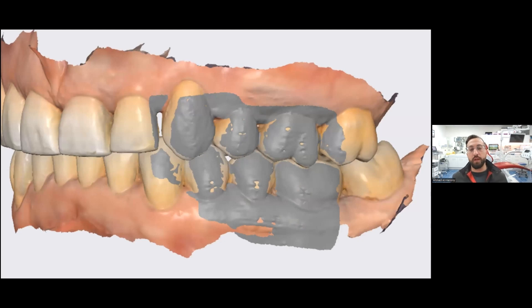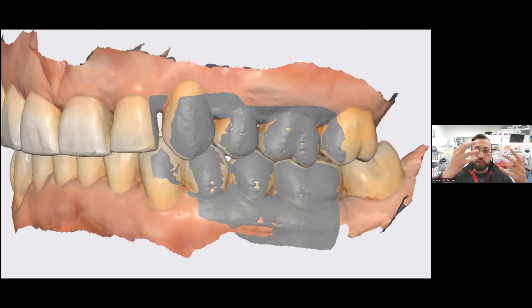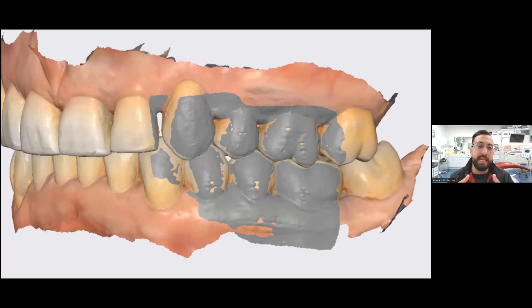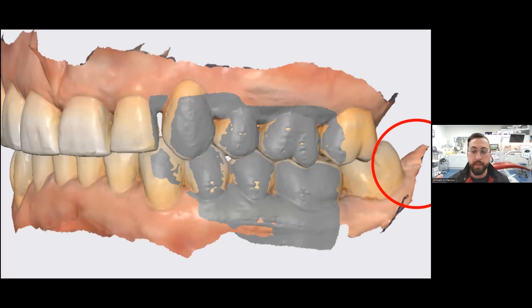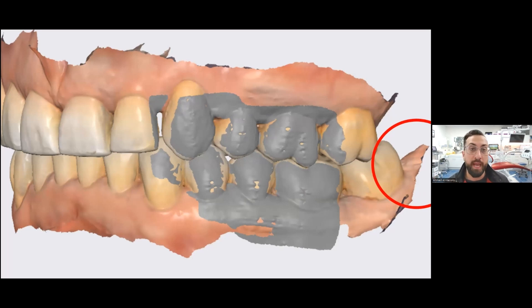When you think about it, the software is just trying to align those two arches together. And if there's a lot of soft tissue in the way, that can basically freak out the algorithm where it's trying to put these together because it sees all these intersections. Most commonly, the areas you need to keep an eye on are two areas: the tuberosities of the upper arch, including some of the buccal sulcus, and in the lower arch, you just need to keep an eye on that retromolar pad area.